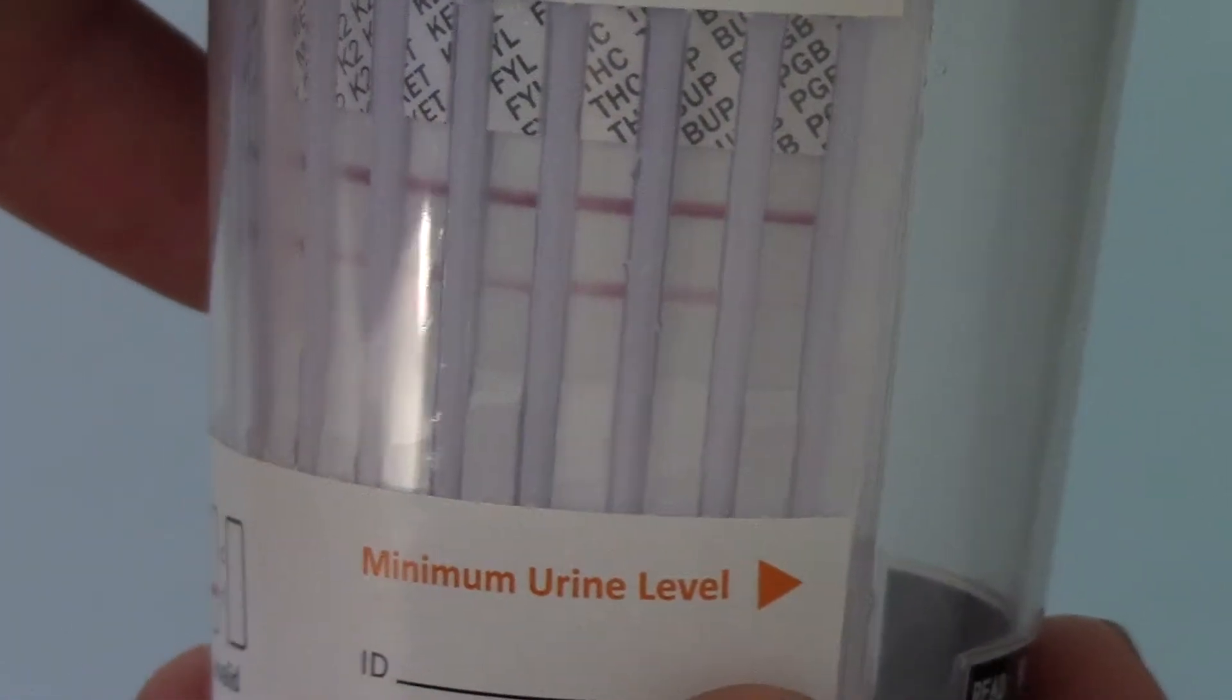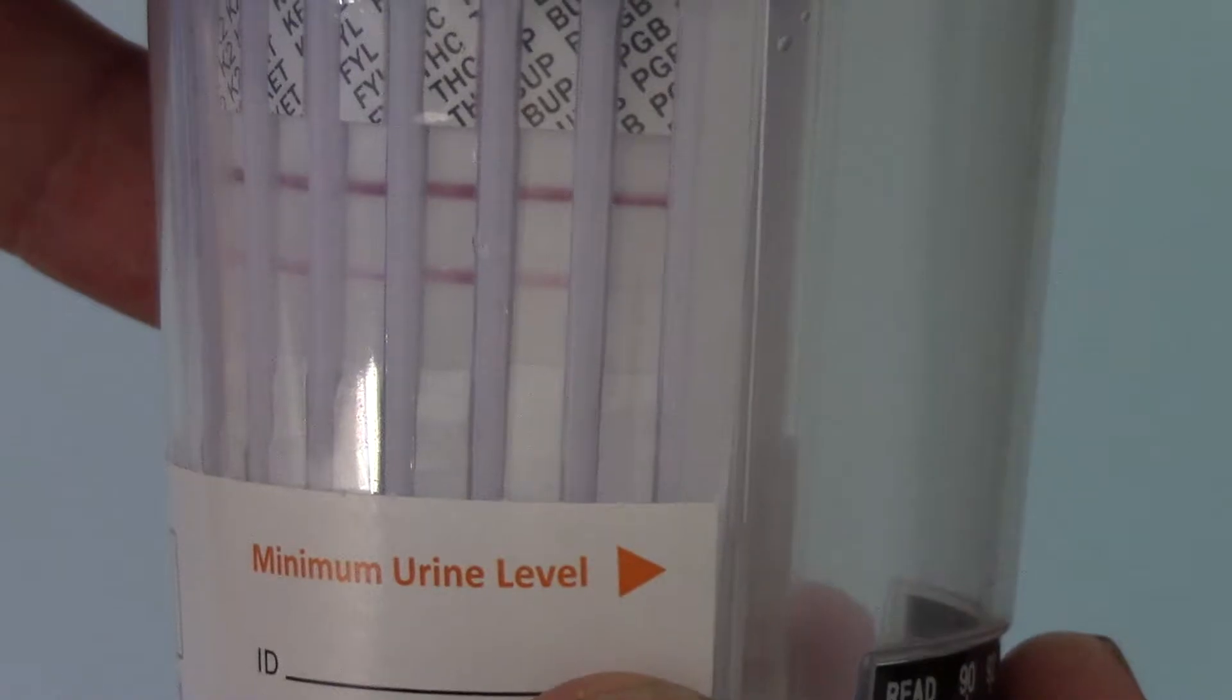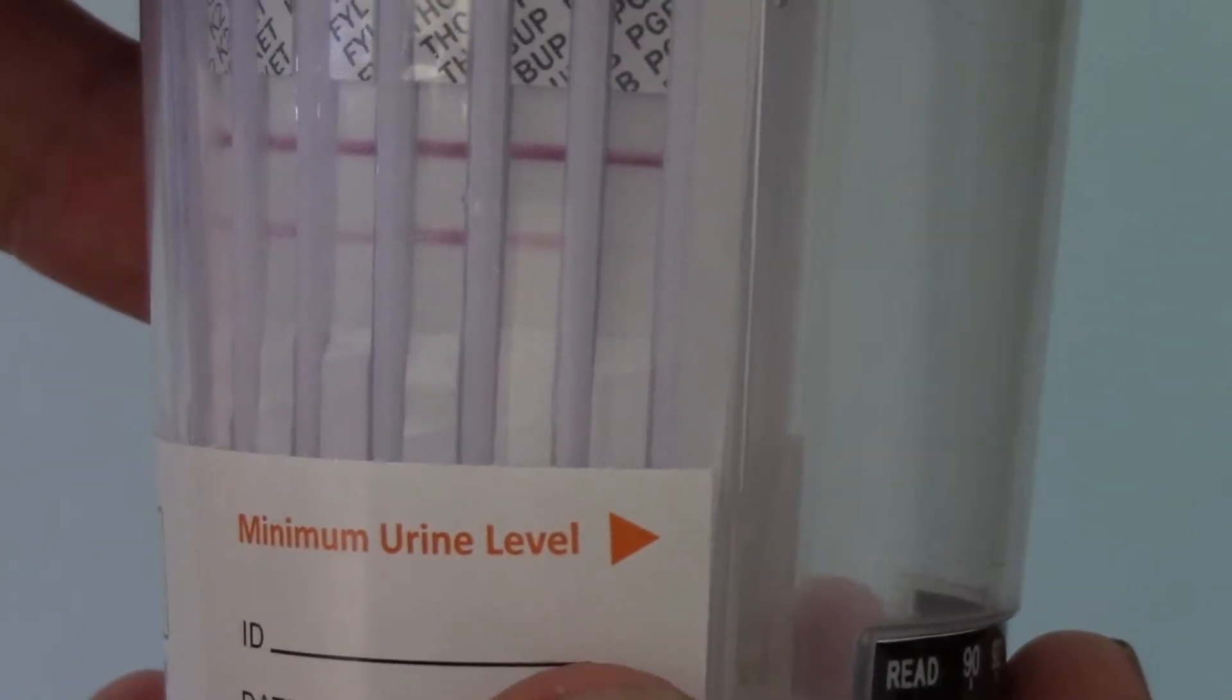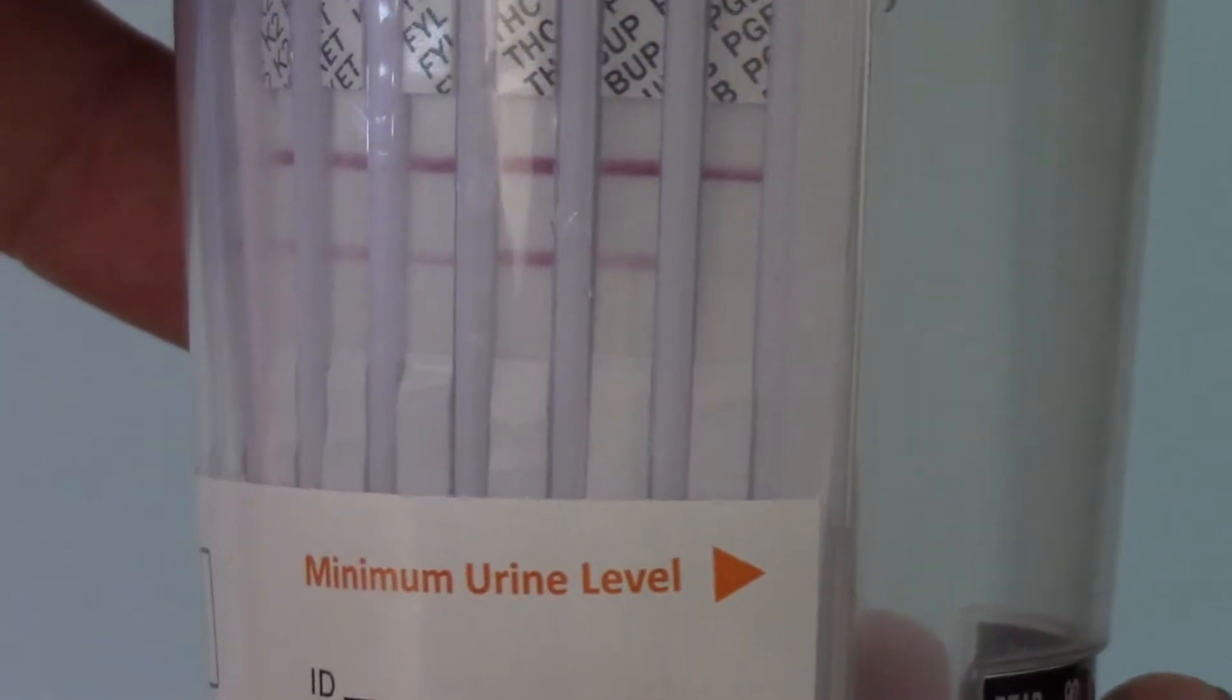Now it's very difficult to discern and I don't think the camera is really going to do it justice. But that emphasises the point here that if you've got any discernible test line, even a ghost line showing at the 10 minute read time, you must interpret that as a negative result for that drug group.